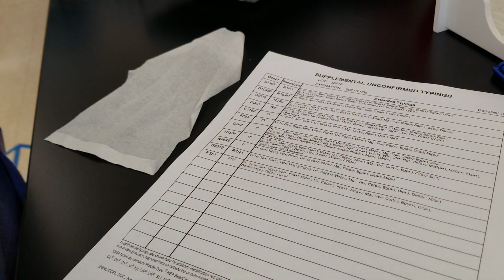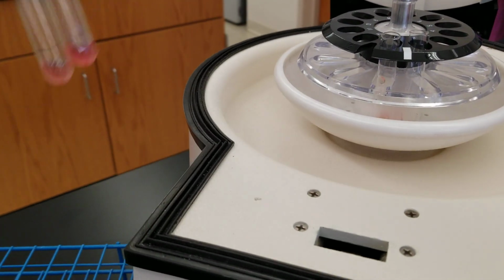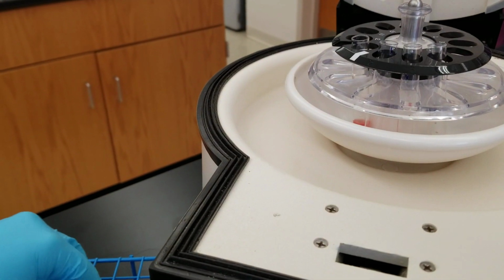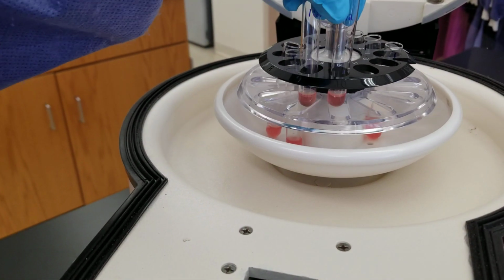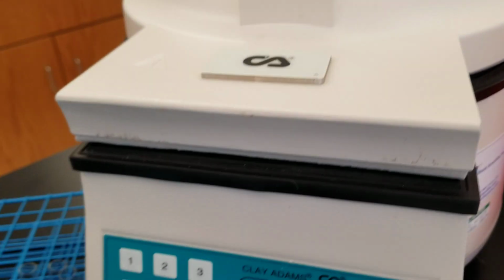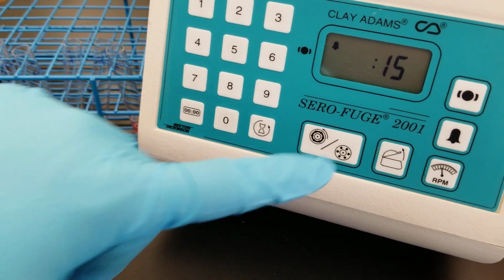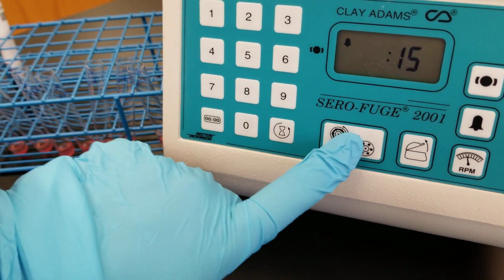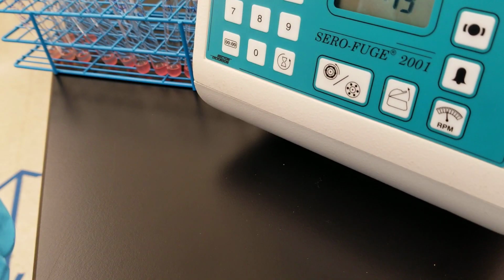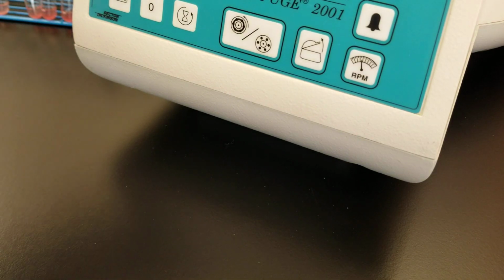All right. So now I need to put the rest of the ones that we hadn't put into the centrifuge. So there's 4. And then we're gonna balance through the rotor with 4. All right, so then we'll read those. I just made sure the top was on a little bit better. All right, so that just ended, and we can get those out and start looking at the reactions there.